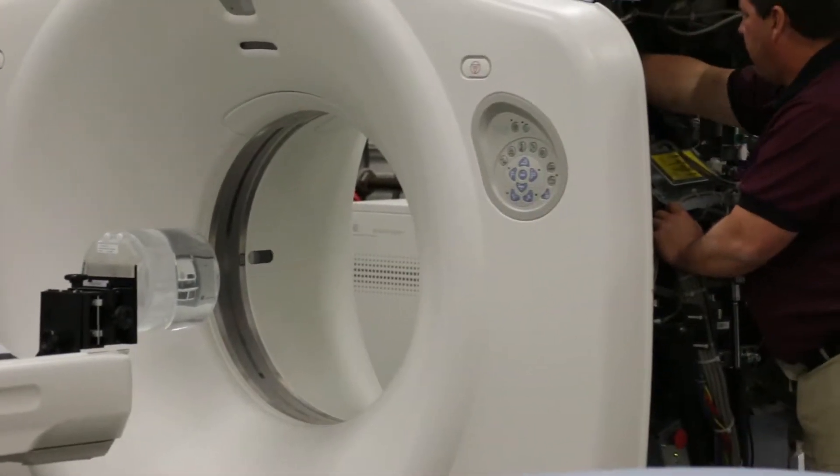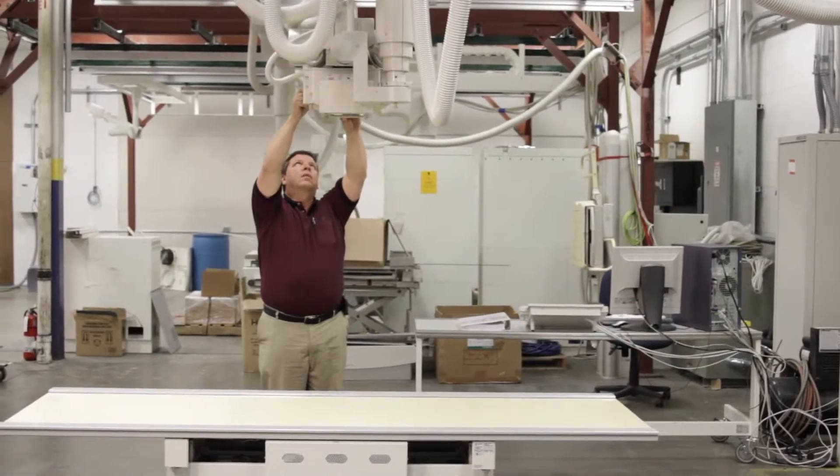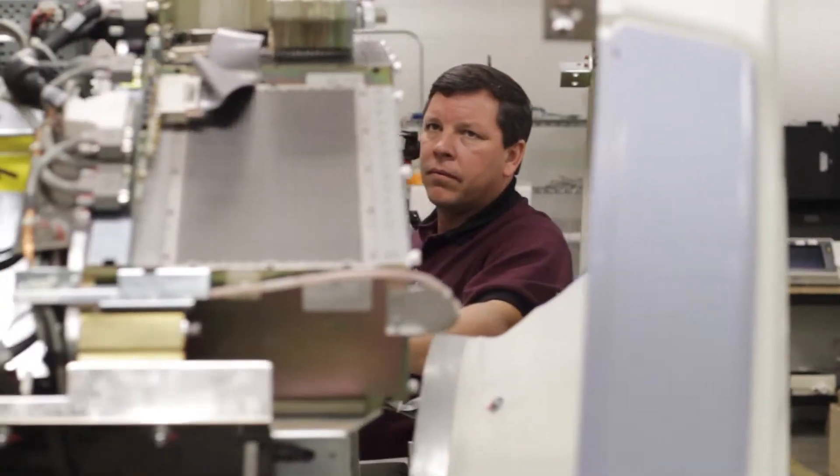A few of RADSource specialties are OEC C-arms, GE RF systems, Philips RF systems, and GE CT systems like this one.